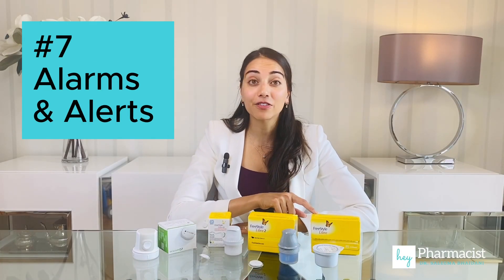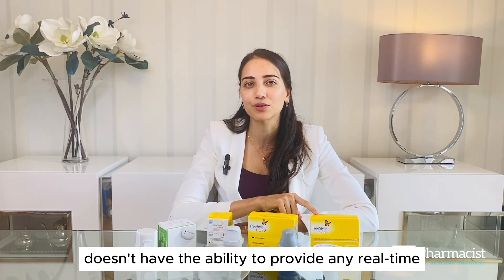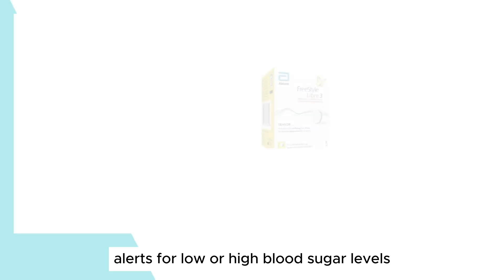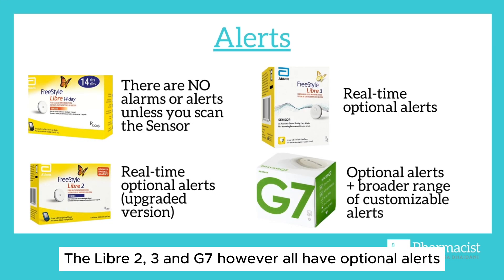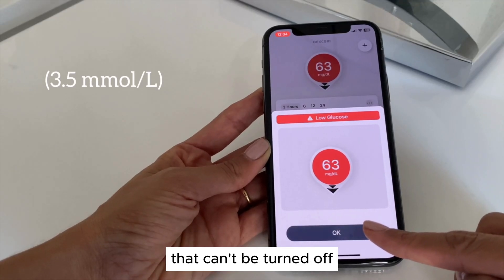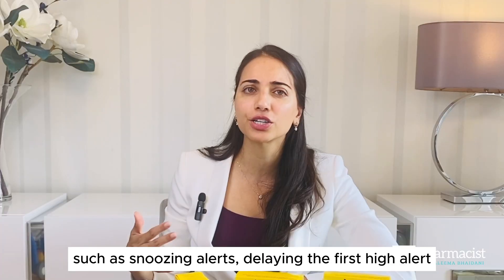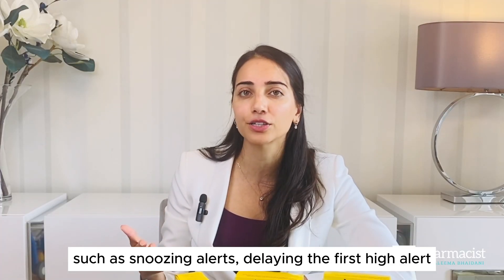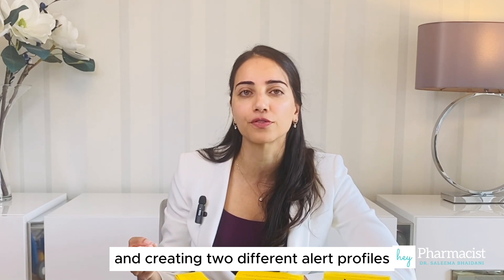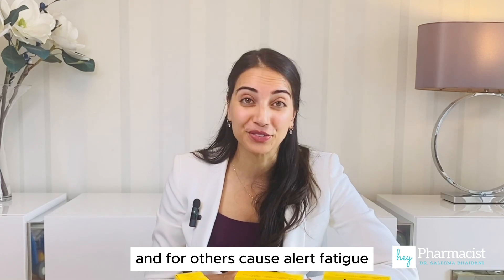On to alarms. Being a flash glucose monitoring system, the Libre 1 doesn't have the ability to provide any real-time alerts for low or high blood sugar levels. The Libre 2, 3, and G7, however, all have optional alerts. They are turned on by default, and the G7 has an urgent low alarm that can't be turned off. I found that the G7 had a few more extra features, such as snoozing alerts, delaying the first high alert, and creating two different alert profiles, which may be beneficial for some individuals, and for others, cause alert fatigue.